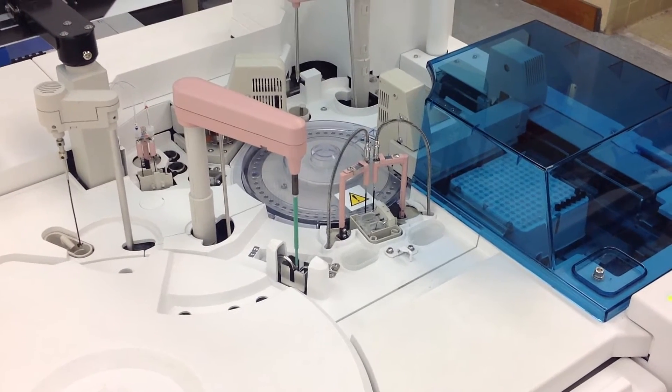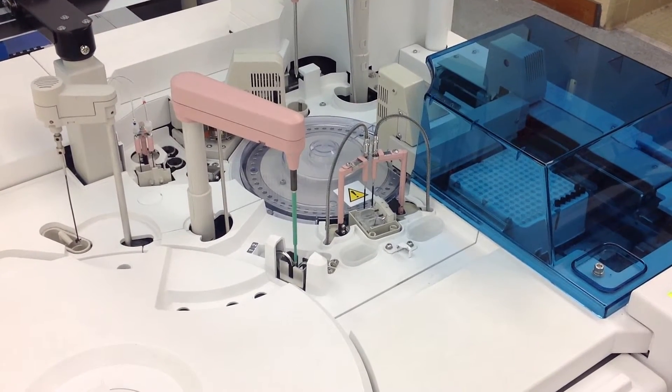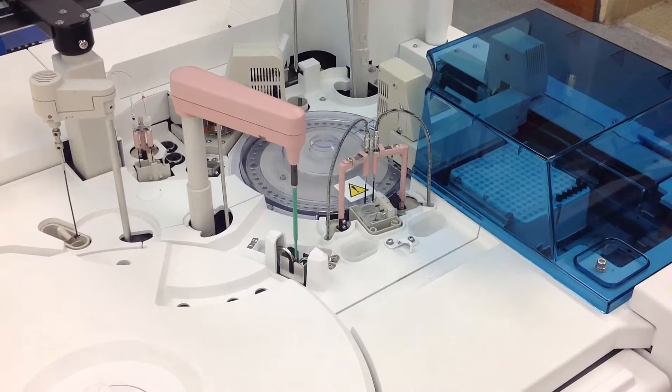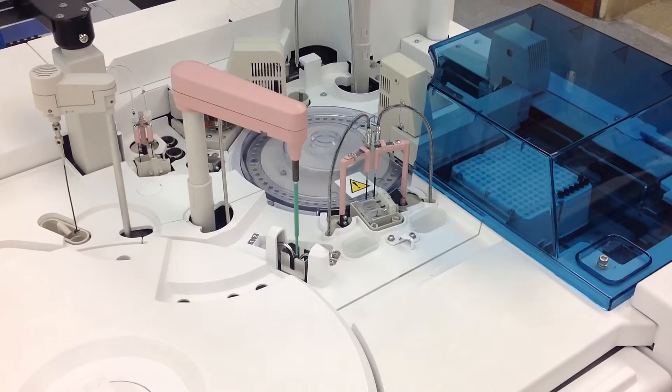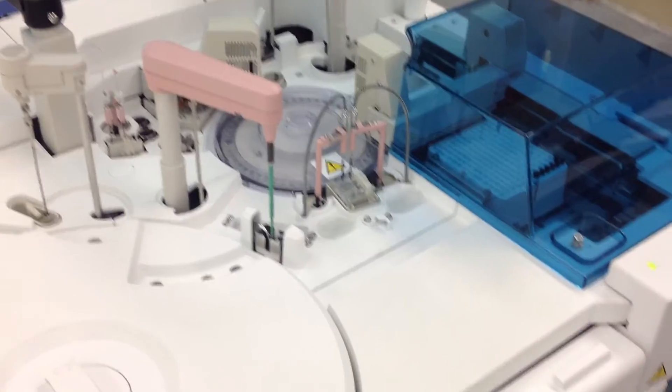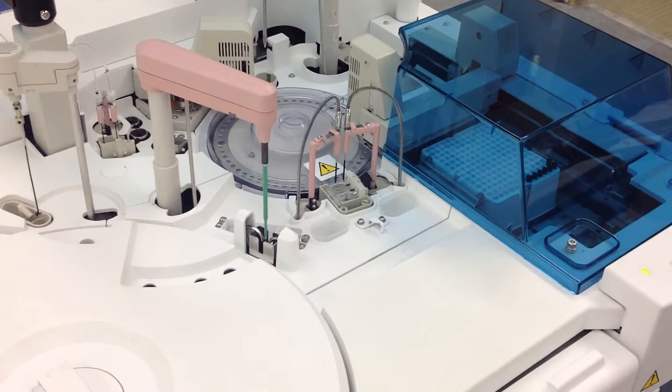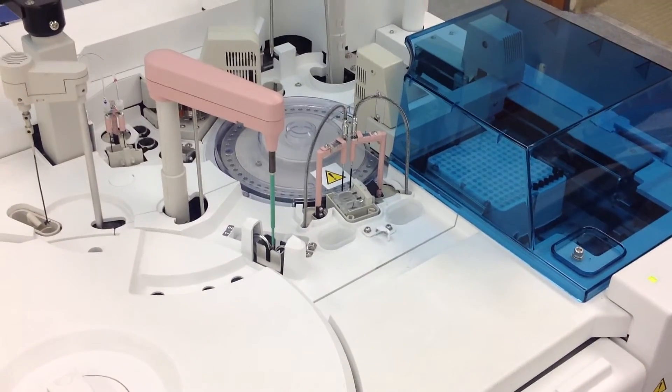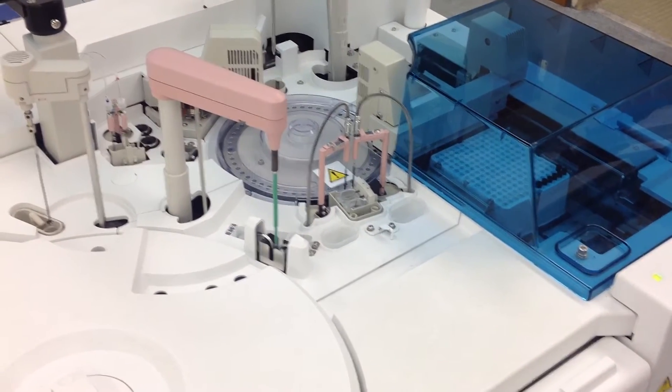So really quickly, I'm just going to show you what the liquid flow cleaning maintenance function is, how to set it up and run it. It's pretty quick as far as getting it going.